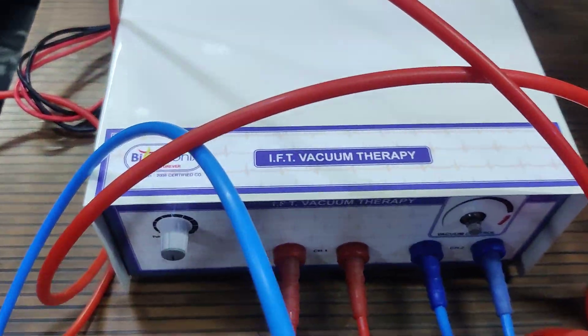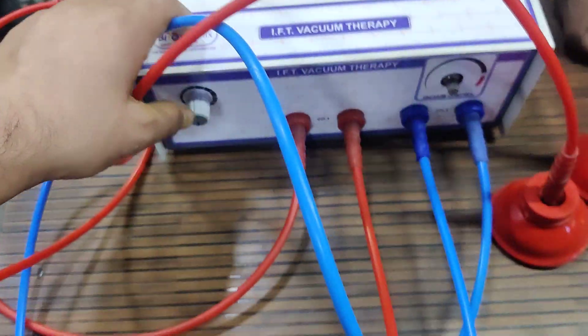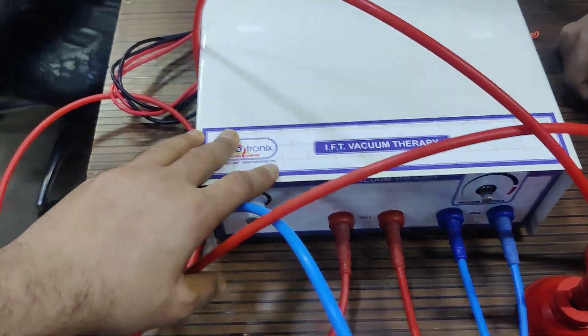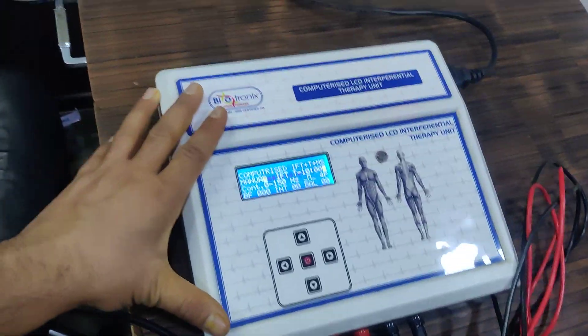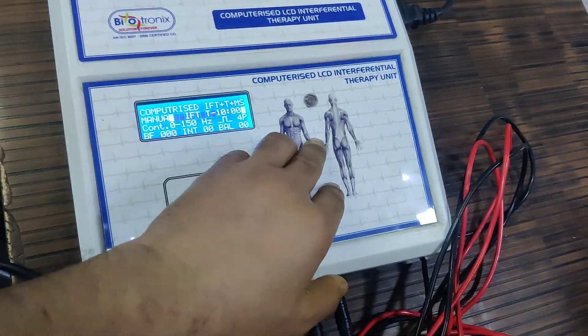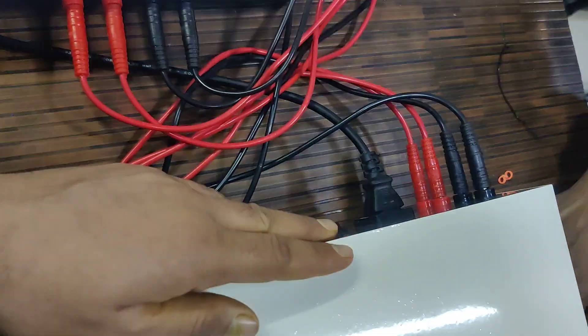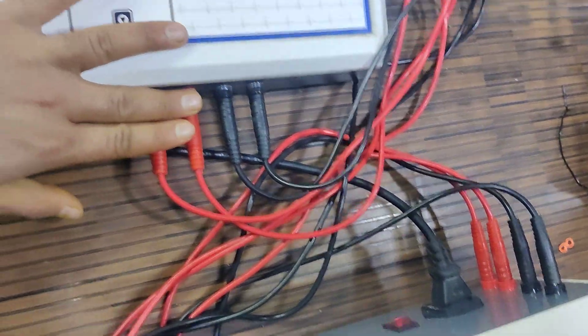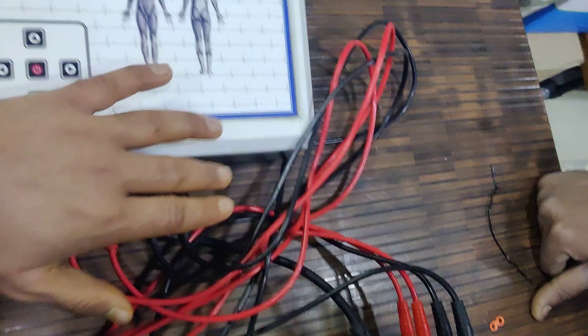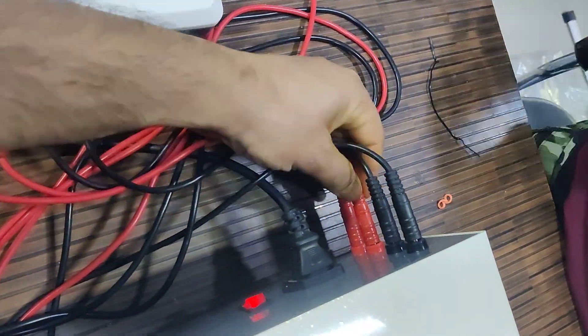This is Biotronics IFT vacuum therapy. This is the vacuum therapy machine and this is the IFT machine. I have connected this IFT with that vacuum therapy. These four outputs of this IFT are connected to the input of this vacuum therapy.